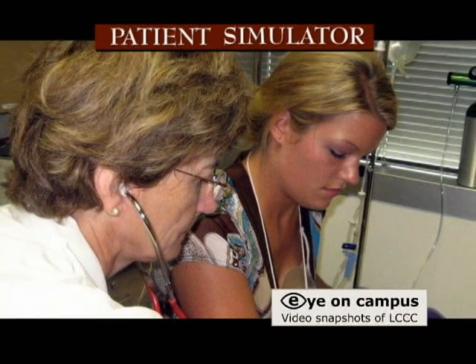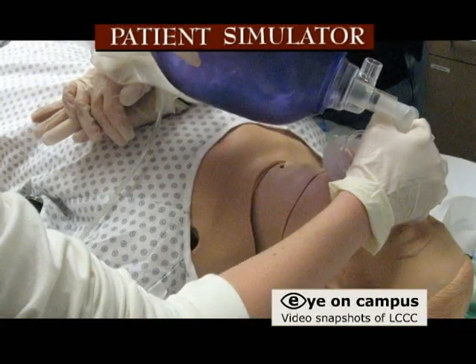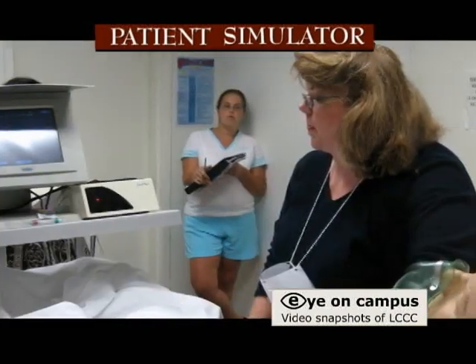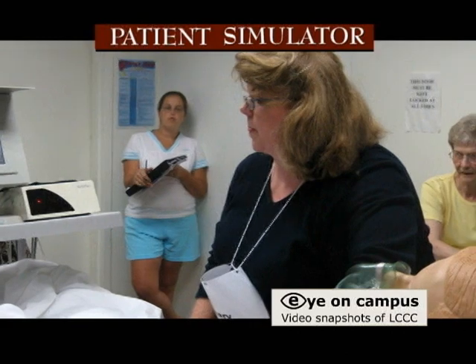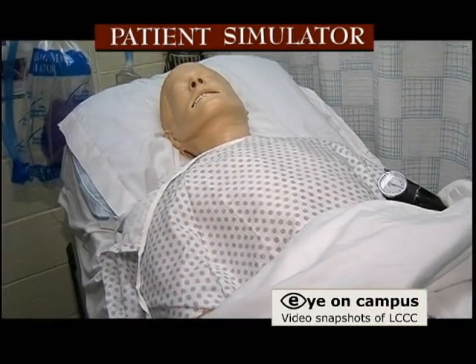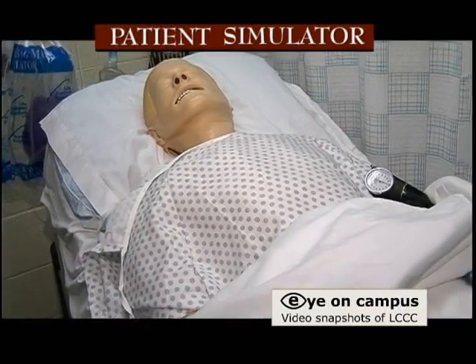Students have found this very helpful and have felt like this prepares them for the real world. I feel like this has been a wonderful tool for students. I feel better now.